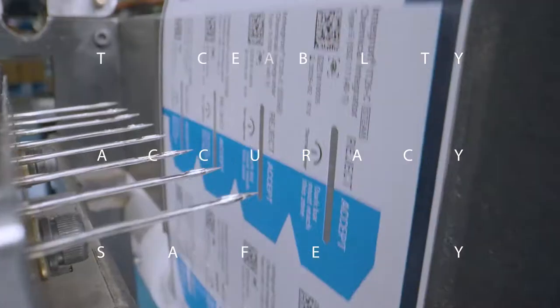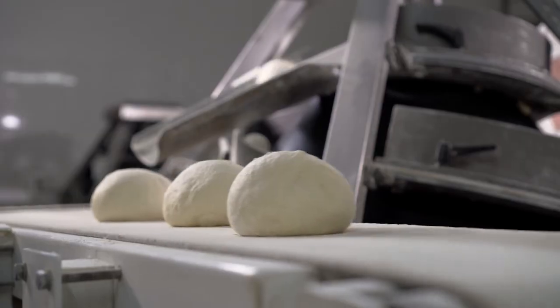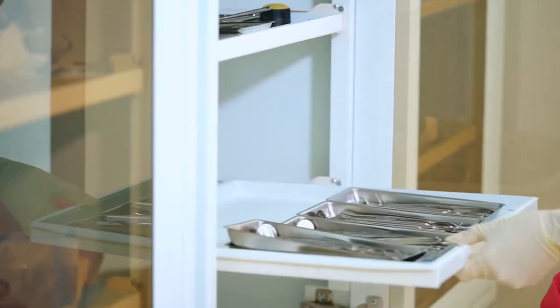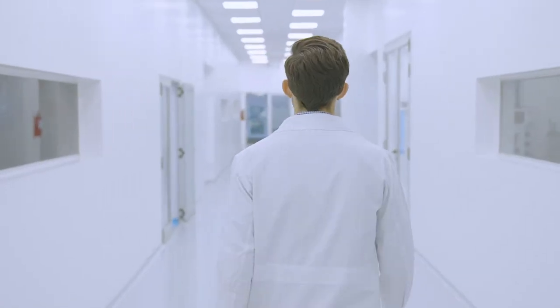Providing speed, traceability, accuracy and safety in medical and dental centers, the food and pharmaceutical industry, sterile materials centers of hospitals and clinics around the world.